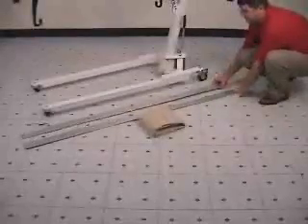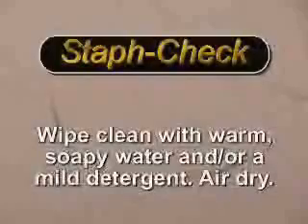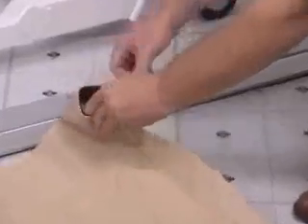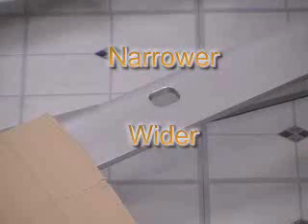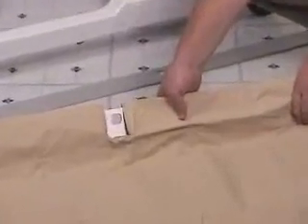Inside, you will see the patient's stretcher. To begin assembly, lay the slats out parallel to each other. Unwrap the stretcher from its plastic wrap, unfold, and lay flat making sure that the seam side is down. This stretcher is made of flame-retardant, antibacterial material for patient safety. The stretcher should only be wiped clean using warm soapy water and/or a mild detergent, then allowed to air dry. Do not attempt to machine wash or dry this material. Find the end of the channel on each side of the stretcher that has a velcro closure. Pull each one open and insert the metal slat through the channel, paying attention to alignment. The slat should be positioned so that the narrower edge of metal goes toward the outside of the channel, and the wider edge toward the inner edge. The holes in the slats should line up with the holes in the channel when properly fitted. This will enable the operator to attach the stretcher to the stretcher hoops with ease when weighing patients.